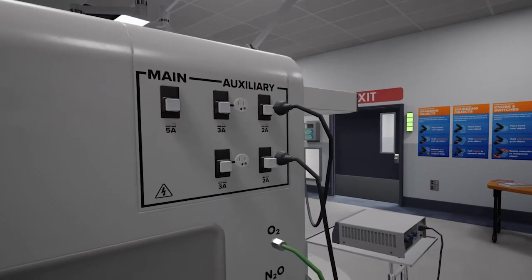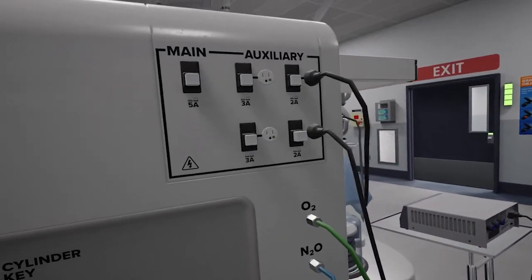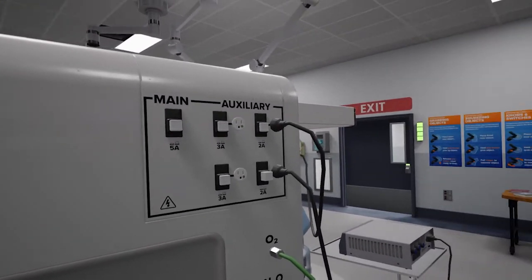So I would like to take a look at what is plugged in and it appears that someone has plugged an electrocautery unit into our outlets.